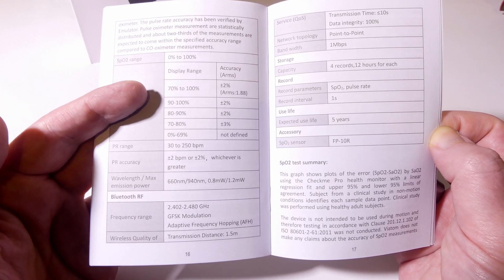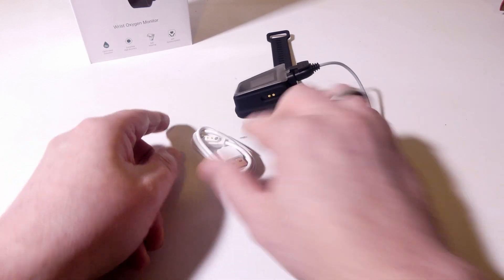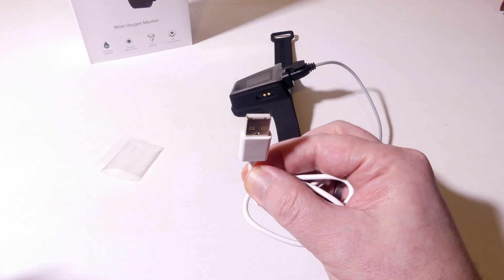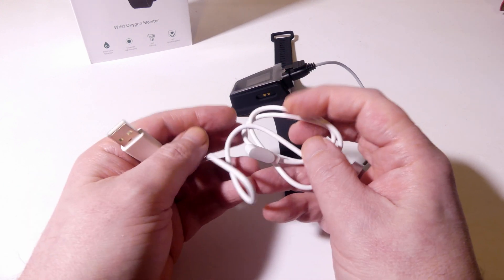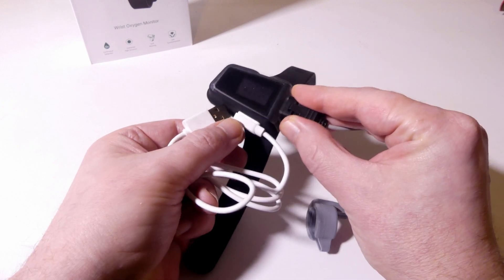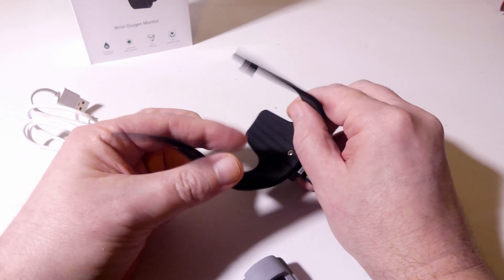The pulse measurement is the same accuracy. It's going to measure anywhere from 70 to 100% on your SPO2, and up to 30 beats to up to 250 beats per minute on your pulse rate. Here we have the charging cable — to fully charge this from 0 to 100 it's going to take two hours. You can use any USB connection on your laptop, PC, or just use an AC to USB adapter. It is a magnetic pogo pin connection, so do not misplace this — it just goes right into the device by magnetic connection.